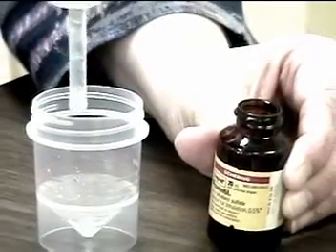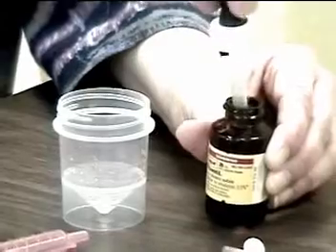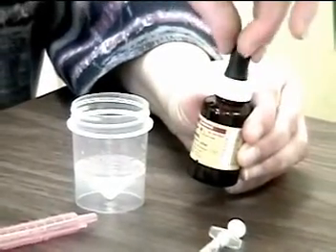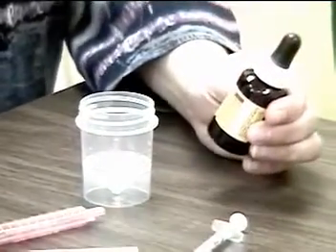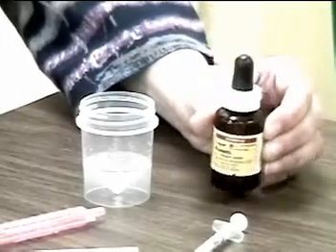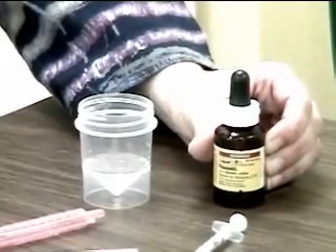I'm going to drop this drug into the nebulizer cup. As I put the cap back on, I'm going to look at the label one more time. That's known as the rule of threes.